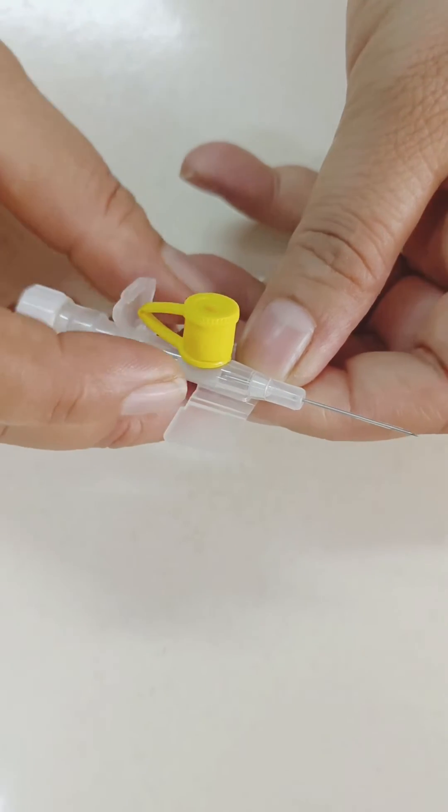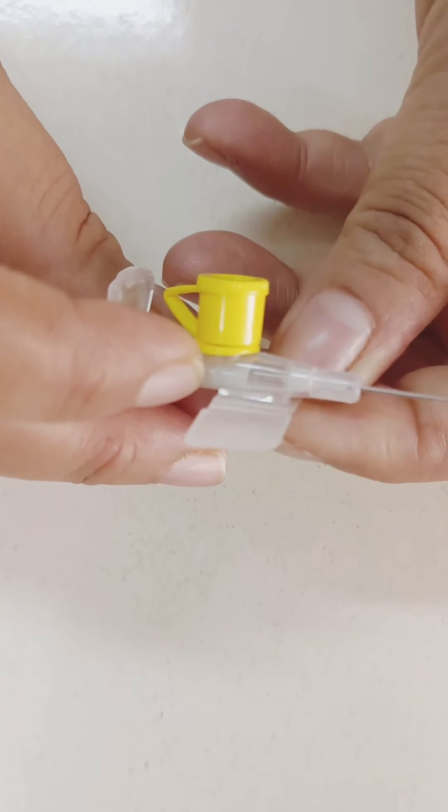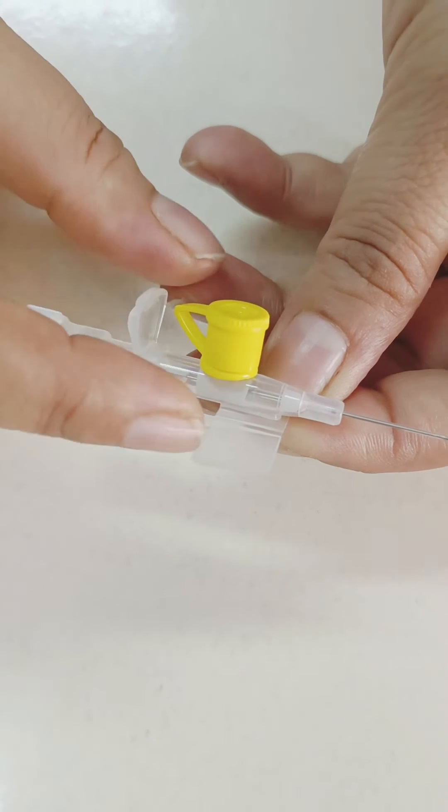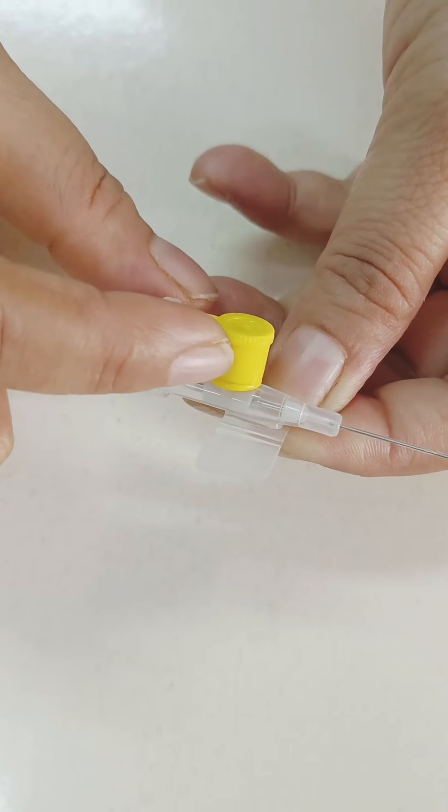See this, there is a valve here which supports the cap. This is valve, it supports the cap.